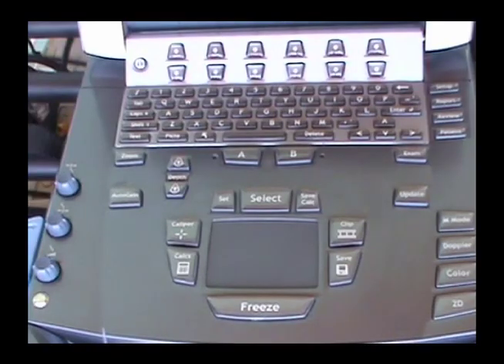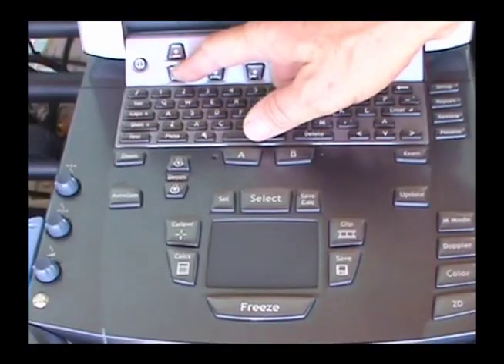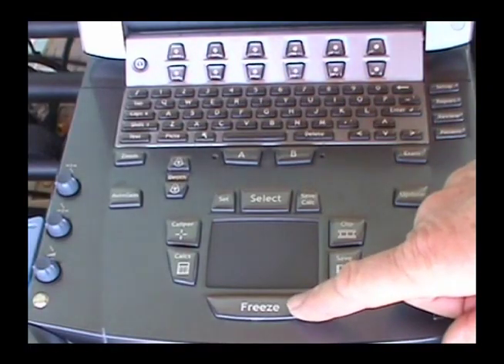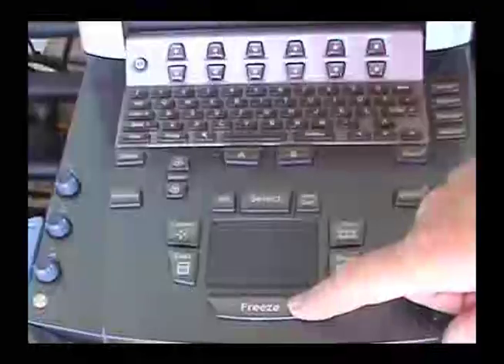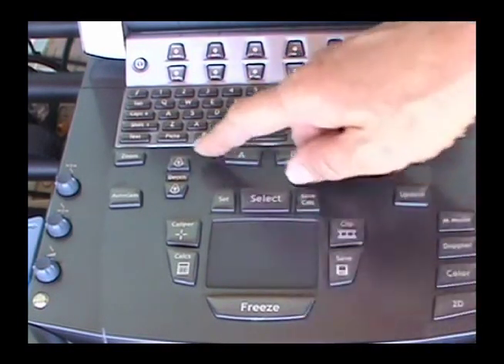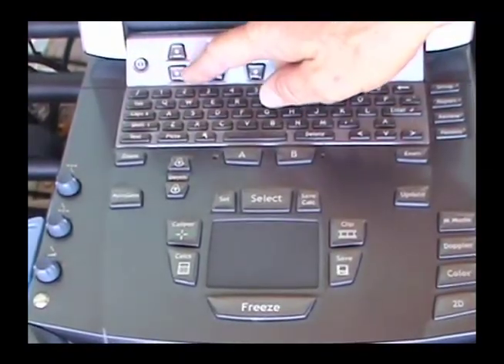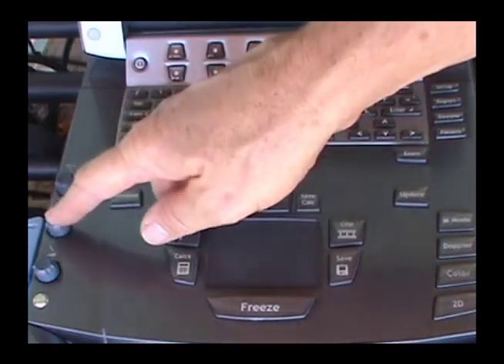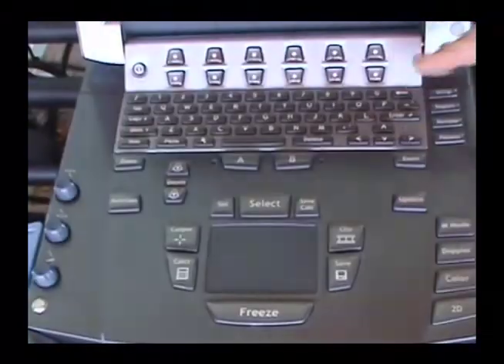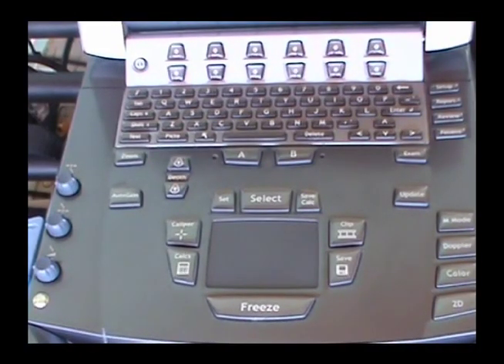Ultrasound machines have a number of buttons, knobs, or toggles that allow you to adjust or optimize the image on the screen. The most important functions to optimize the two-dimensional ultrasound image are depth, frequency, gain, and focal points. Study the owner's manual for your ultrasound machine to see how to access and use these functions.